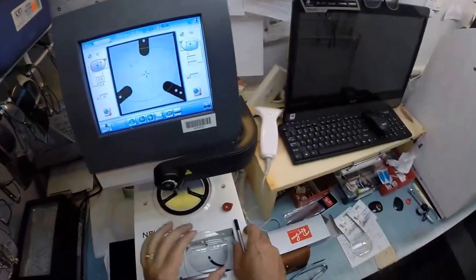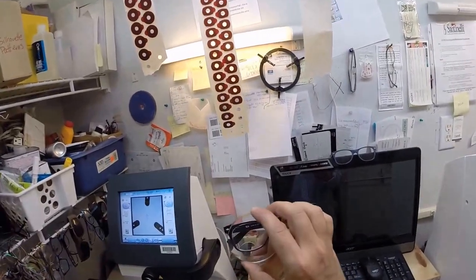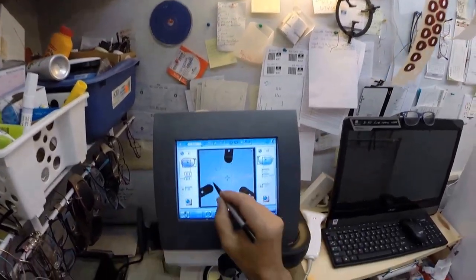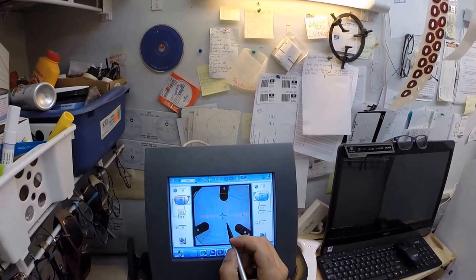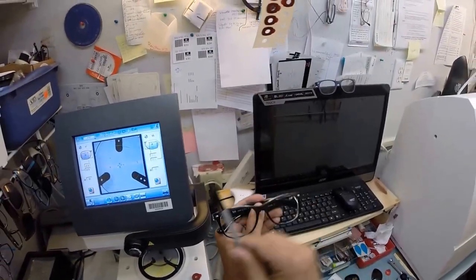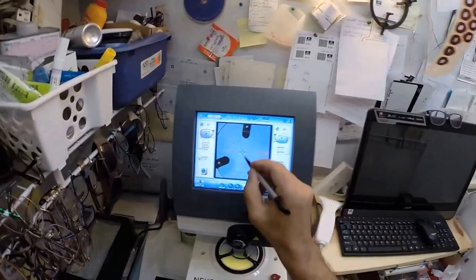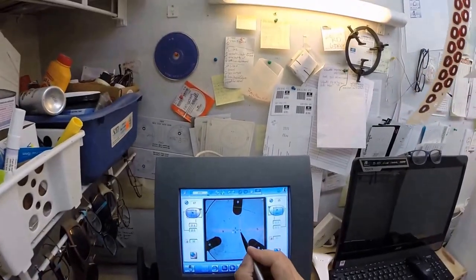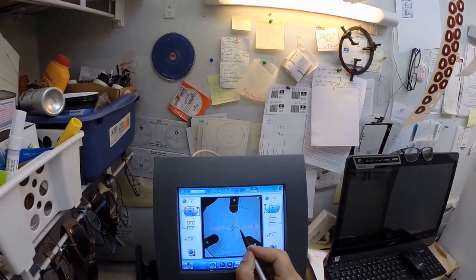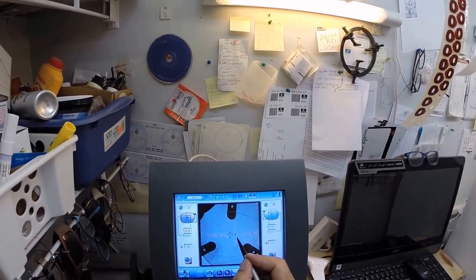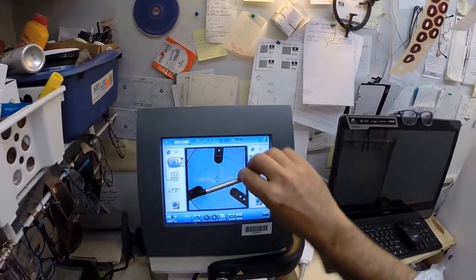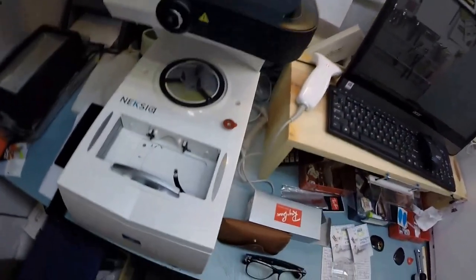Put that on the first one, put this on the second one. This little silver button on the back is a magnet. It's gonna do its job twice. The first time, let me pull the paper off - make the black side sticky. I'm gonna marry this magnet to the one that's in here. That's gonna hold that in place. The reason why I put the three dots on there: it tells me exactly how to orient your lens. It can only go in your frame one particular way. Those three dots give me a horizontal meridian that I'm gonna place on that horizontal meridian.